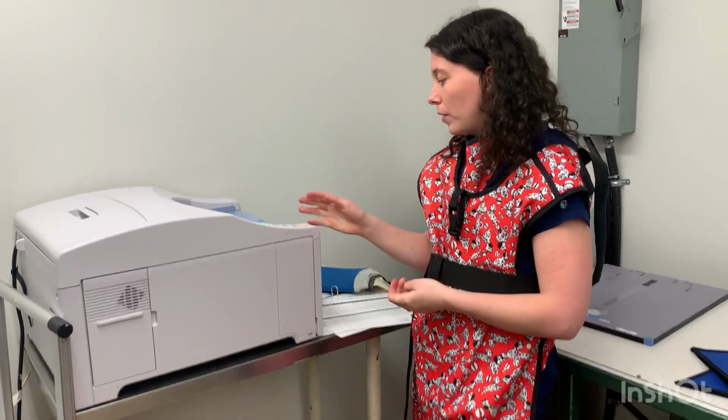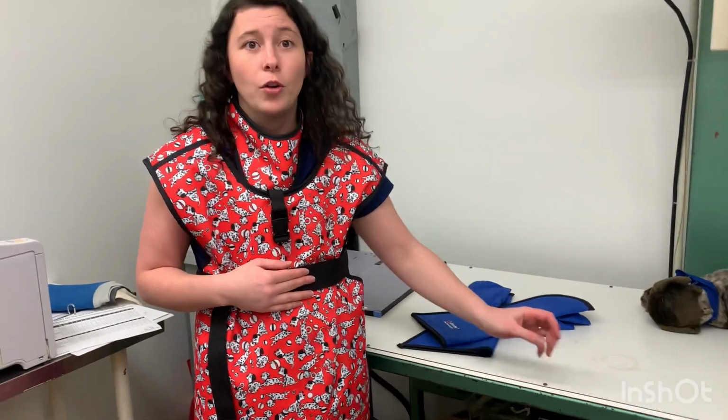But that's the difference between using an automatic processor versus doing it by hand, or by using the processor for the CR unit, as they explained. With a digital unit, you don't have to change the latent image into a digital image by using a processor. It connects directly to your computer without a processor. Everything is done within a built-in plate. The plates are built directly into the table. You don't have a cassette where you need to take it in and out, and everything from the latent image all the way through to the digital image is done through the plate that's already in the table. There's no processing involved.